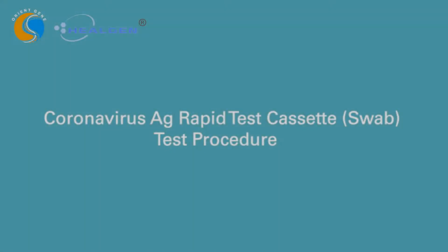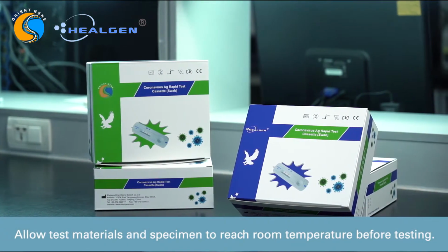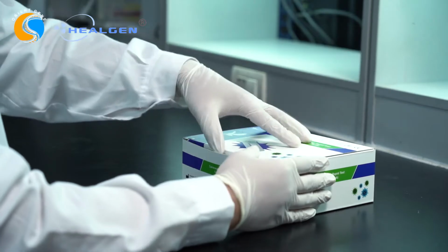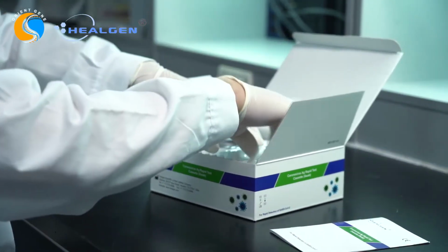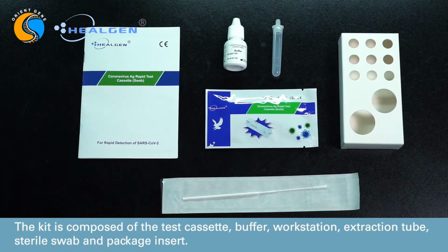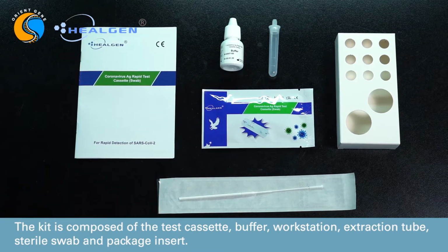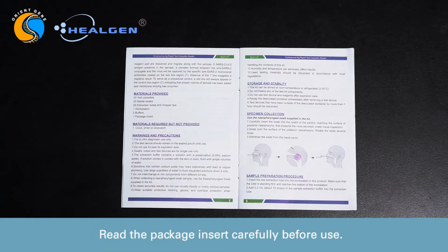The Coronavirus Antigen Rapid Test Cassette, Swab Specimen, Test Procedure. Allow test materials and specimen to reach room temperature before testing. The kit is composed of the test cassette, buffer, workstation, extraction tube, sterile swab, and package insert. Read the package insert carefully before use.